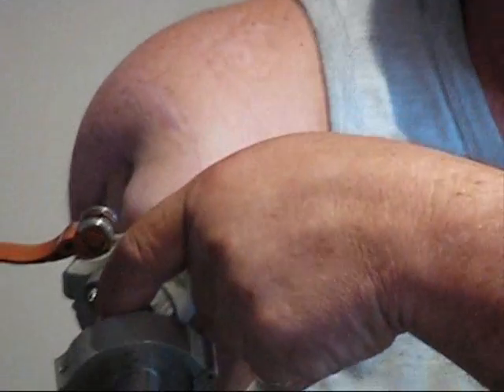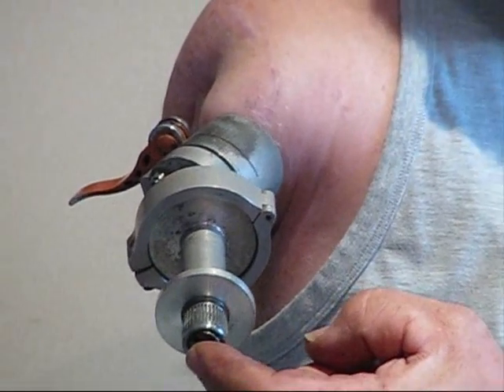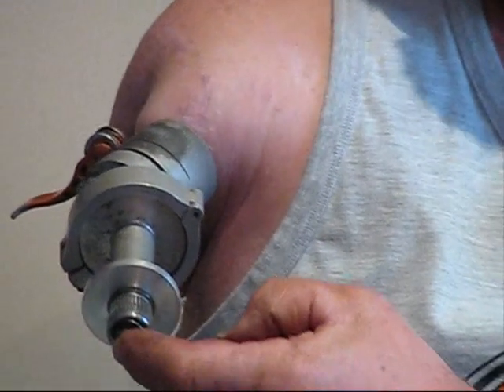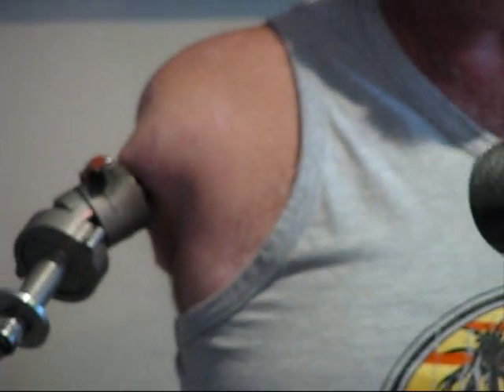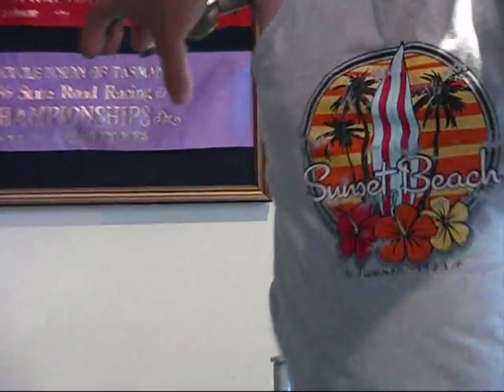It goes on like that and snaps on. You put it to the right angle. There's a ball joint in there to align the arm in the correct direction, and down here is an attachment which is normally out of a prosthetic wrist but in this case it's been used on the upper humerus. So I'm clamping up the puck now, and then I am donning my prosthesis. The prosthesis is endo-exoskeletal but it doesn't use a socket. It looks like a socket, but in the end of that there is a conventional wrist clamp which snaps in.